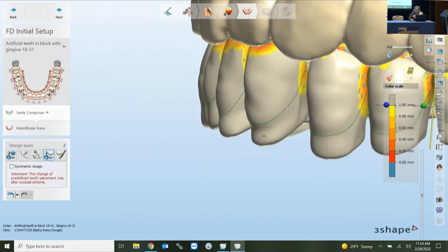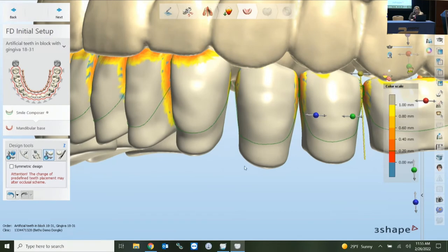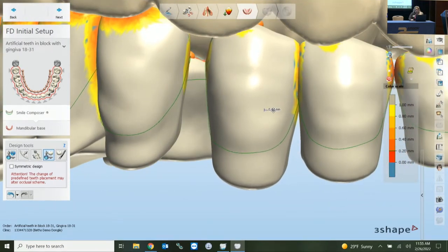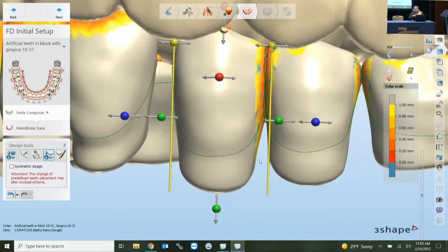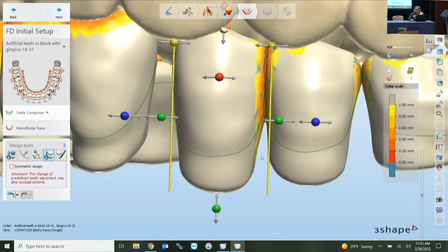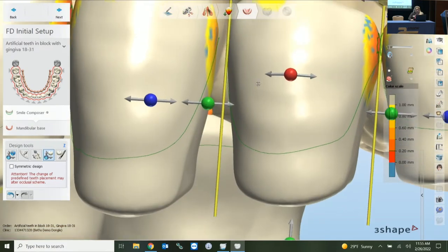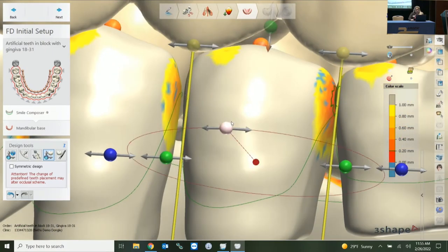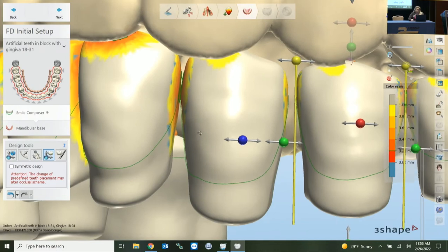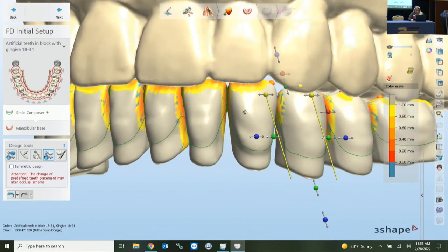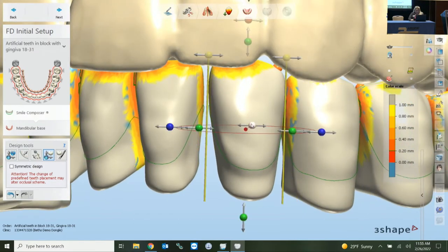When designing dentures, the green spline is a very strong visual cue for success. 3Shape does not want your teeth intersecting in a way where your interproximals disappear on that green spline — that will strongly affect your ability to move forward, especially when you get into the connectors and coupling mechanism. You can right-click and bring to mesial contact, but watch how high the interproximal spline goes. Your teeth can still touch, just avoid heavy intersecting there.